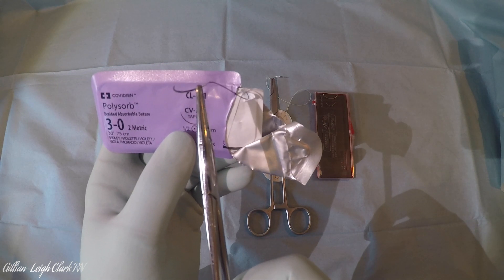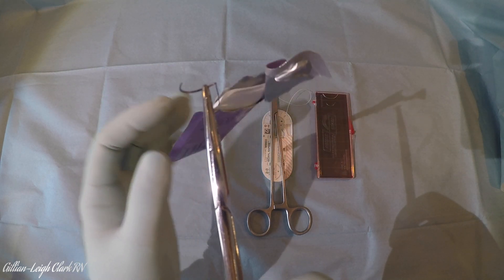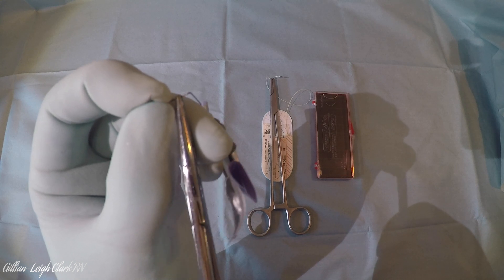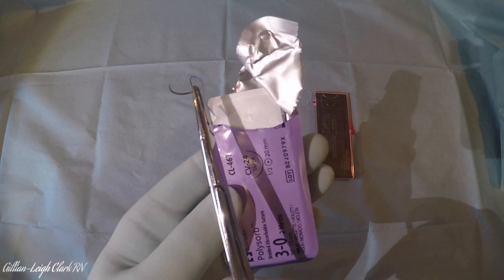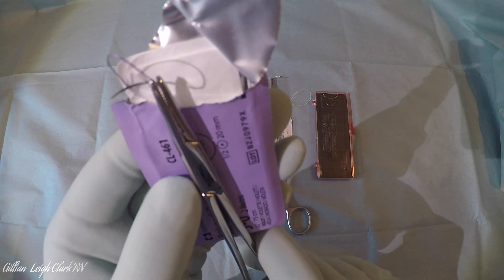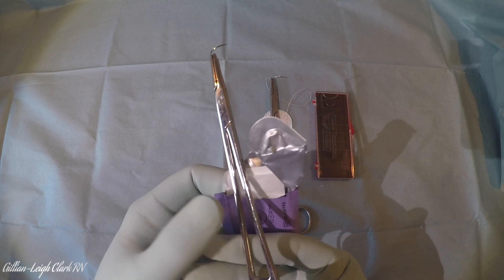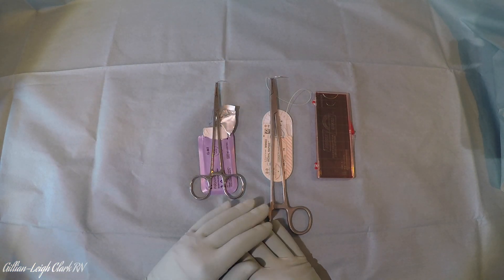Have a quick look - it looks pretty straight, though I would maybe adjust that a little bit; I'm a little bit pernickety. Put your finger on the needle holder for stability, hold the needle where it isn't pointy, and you can unclamp and reposition just a fraction so it's nice and straight at 90 degrees to the needle holder. Just a millimetre or so over the needle so it's nice and secure. Then lay it down safe pointing downward so you can't put your hand on the sharp part.